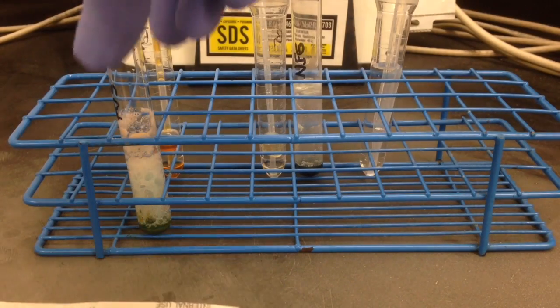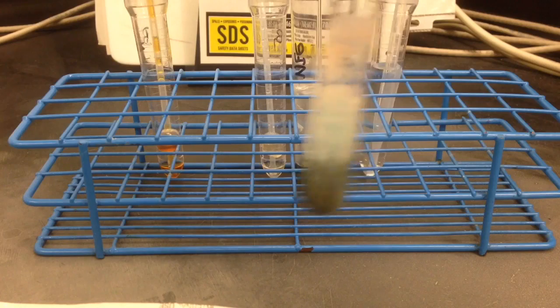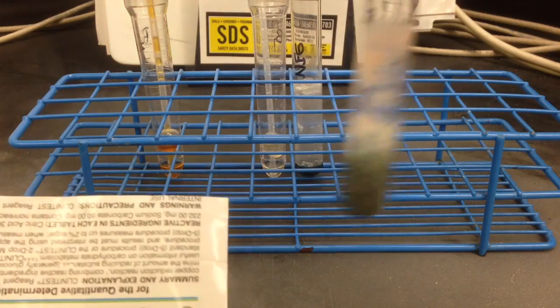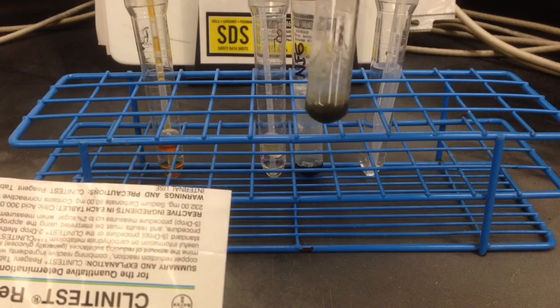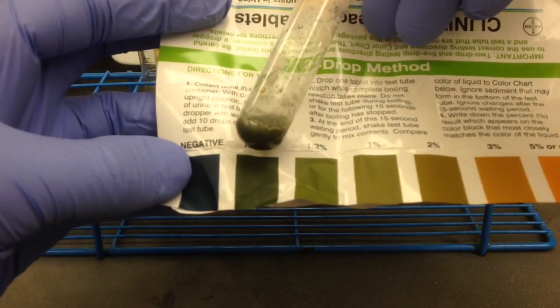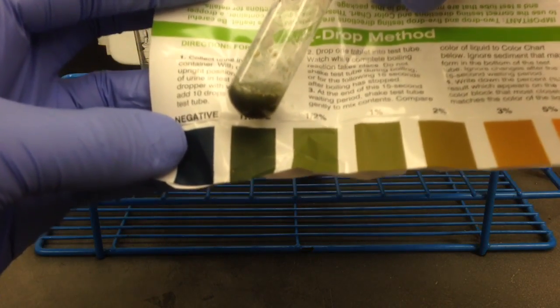It was actually taking a while, so I had to pause it and start over after it was done, and I've waited my 15 seconds. Give it a quick mix, and then you can see this is a darker green color as compared to the negative's blue, and that's all there is to it.